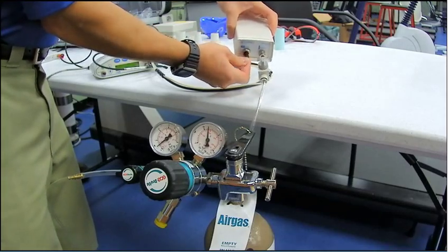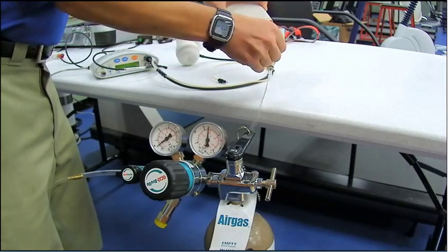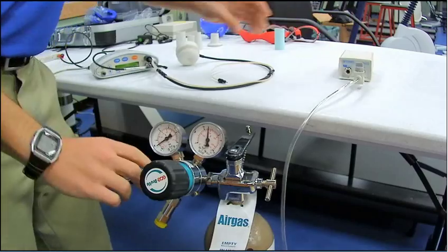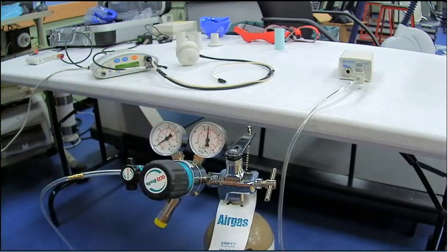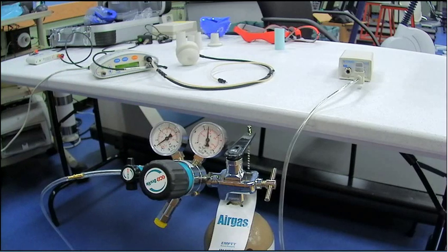that you're going to need to take that flow line out again, close the calibration box gas line, and then close the gas tank gas line. Once all that's done, you're complete.